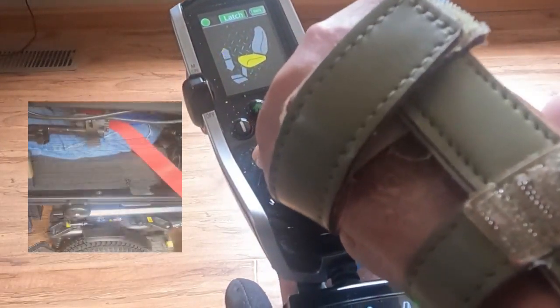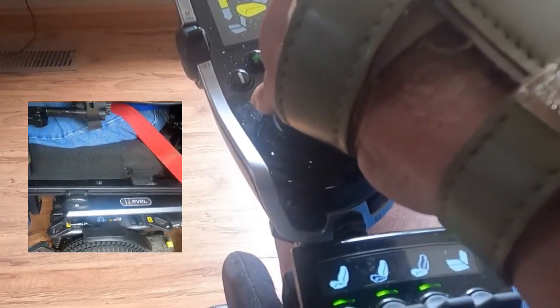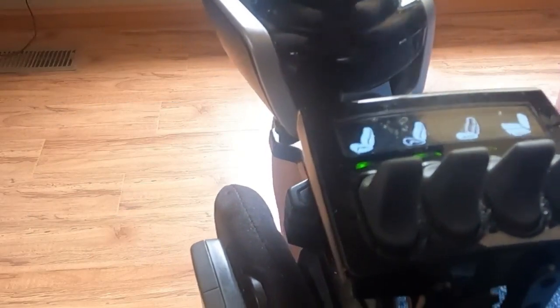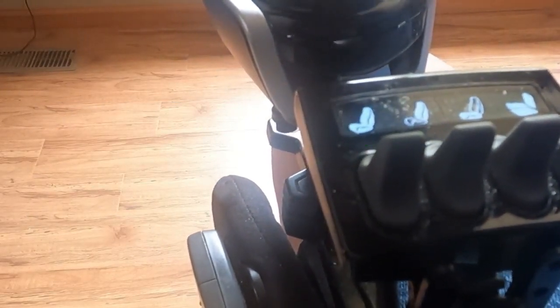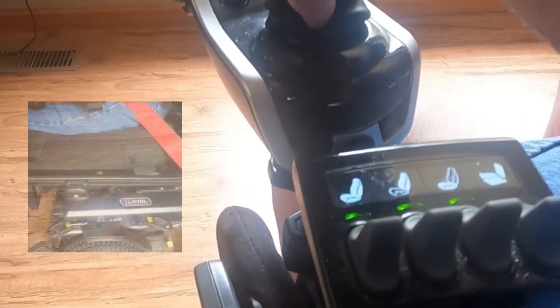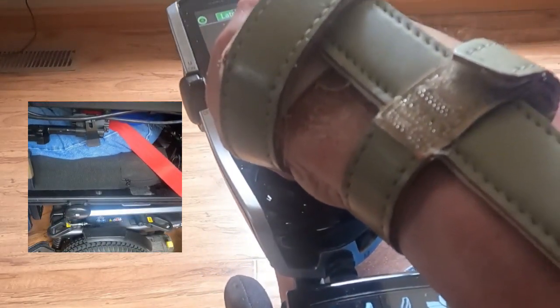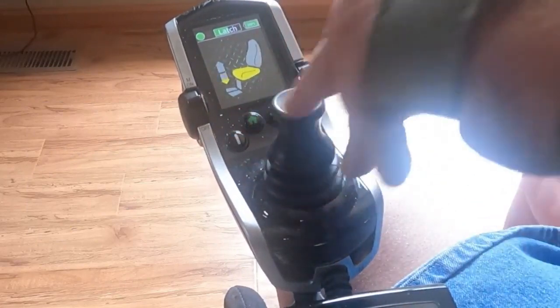By bumping the control handle to the right one more time, only the seat bottom is illuminated on the controller screen. Now if you pull back on the joystick handle, the elevating seat function will raise the seat until you return the handle to the neutral position. To lower the seat, push forward on the handle. If you wish to stop the seat at any height while going up or down, just release the joystick handle.